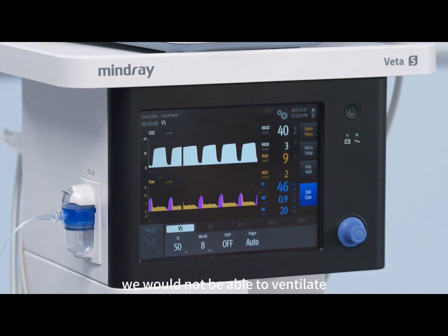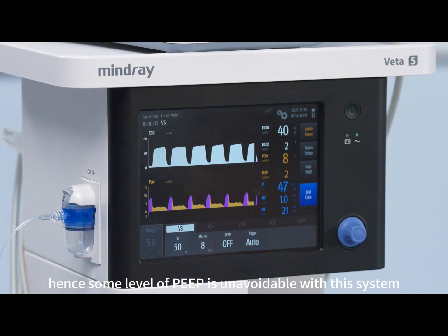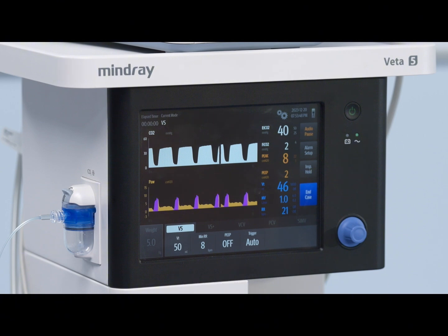Without a PEEP, we would not be able to ventilate any patient with this or with any similar ventilator. Hence, some level of PEEP is unavoidable with this system, and in this case of the Veta5, this default PEEP will be a similar value for both the small and the large ventilator bellows.